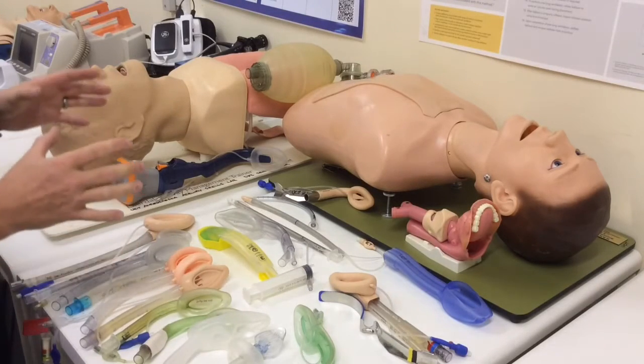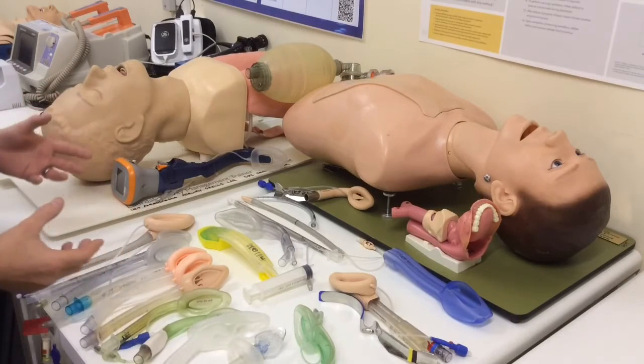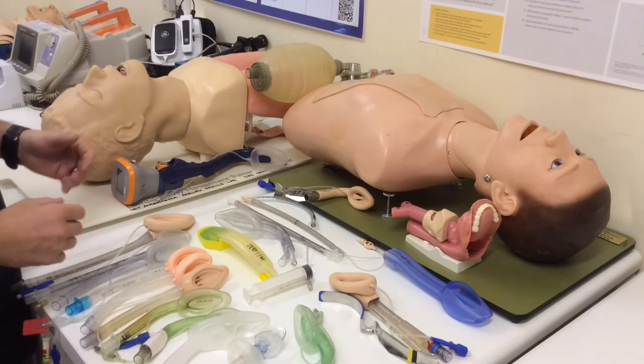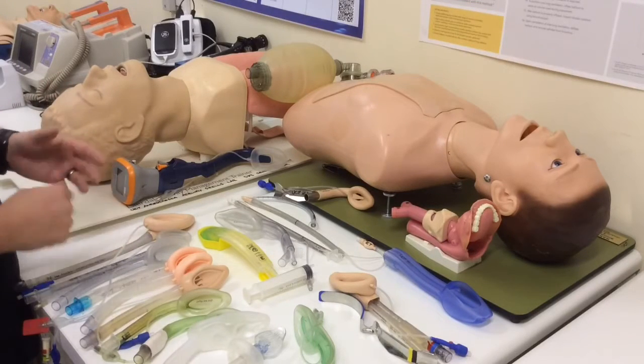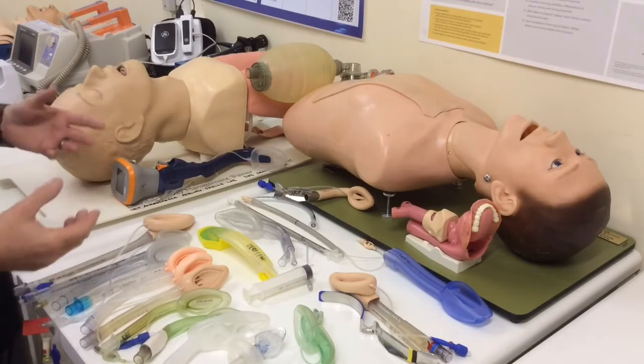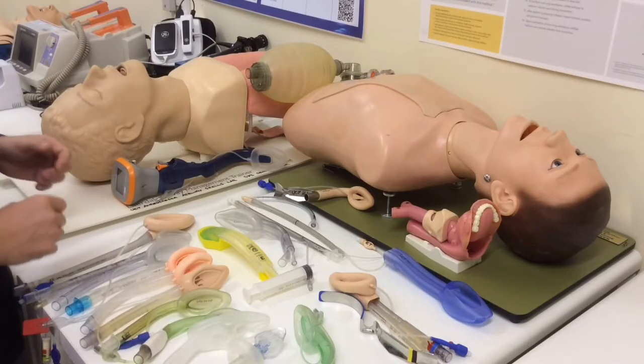So we recognize that particularly in anesthesia, supraglottic airways are first designed for where we want to perform general anesthesia and try and avoid intubation, or perhaps we want to keep the patient breathing spontaneously. We don't want to do something as invasive as intubating, and for that we can place a supraglottic, let them breathe, or if it seals well, actually ventilate the patient positive pressure.